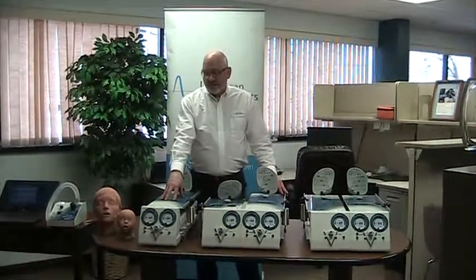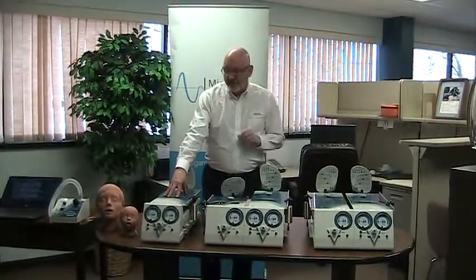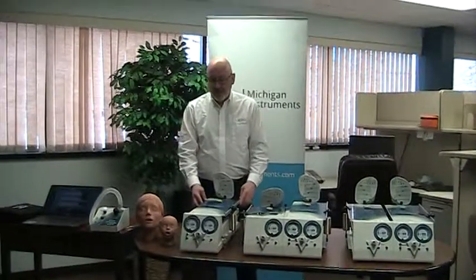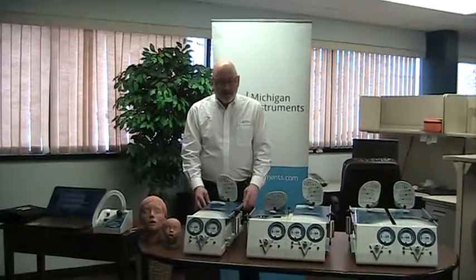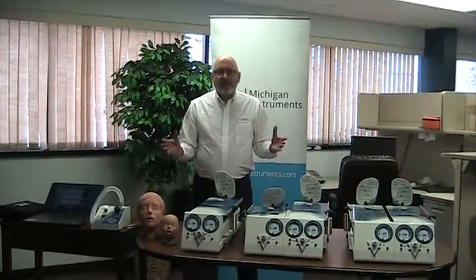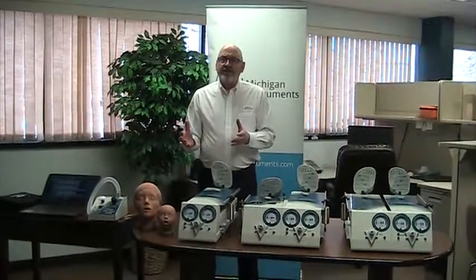Again, the single adult unit has just the same lung as found on the dual adult, but just a single unit — smaller footprint, smaller total volume. All of these units are available in TTL or NuView configuration.